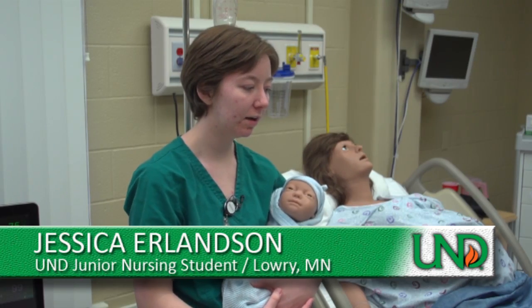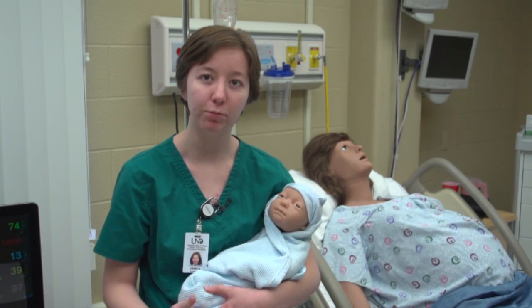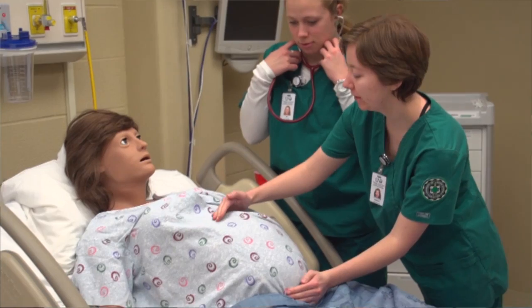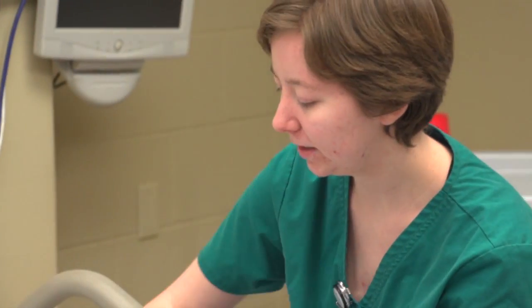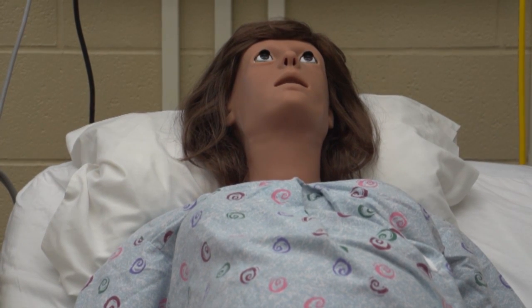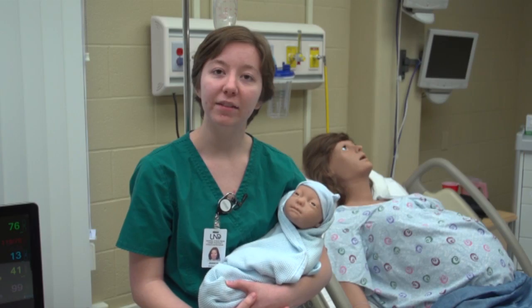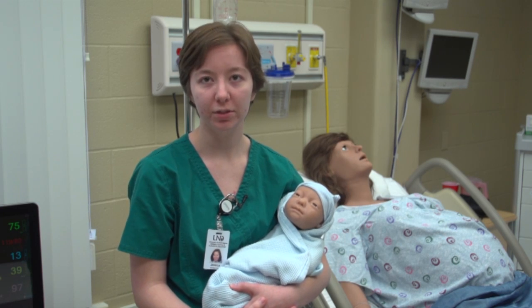I think it's a very ingenious way to let nursing students have a comfortable environment to practice and perform their skills, practice more, gain more confidence, and then be able to relate it to clinical scenarios and learn from anything that happens here, then apply that to clinical practice in the future.